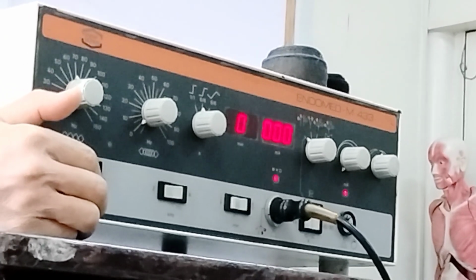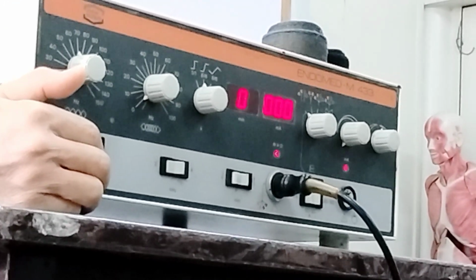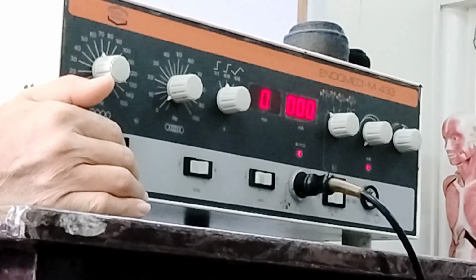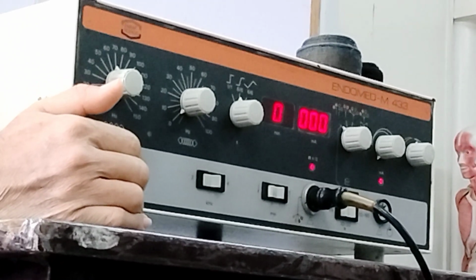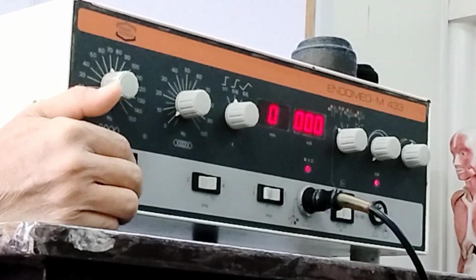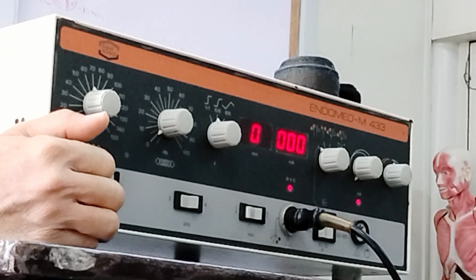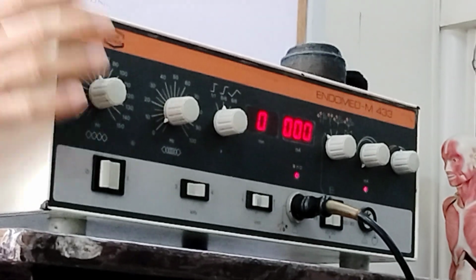Acute means it is painful. The injury has only just happened, so it hurts, right? That's why, if we're going to prescribe something there or treat that condition, especially pain, we prescribe something less aggressive, or else the patient might encounter discomfort. If your condition is getting towards chronic or further subacute, your stimulus there should be more aggressive, for the reason that as time goes by, the patient will tend to be more adapted to the sensation of pain.